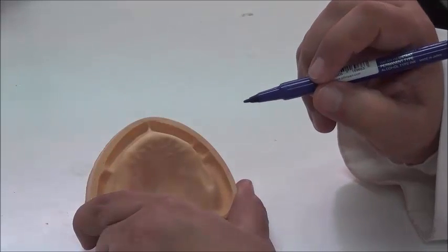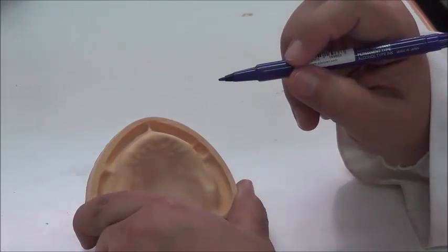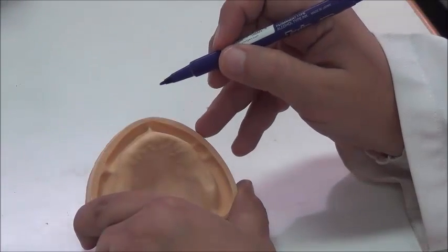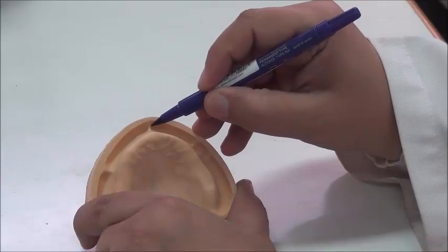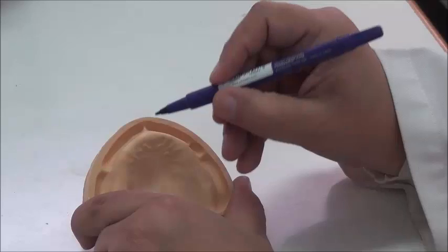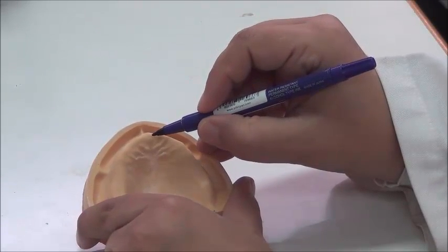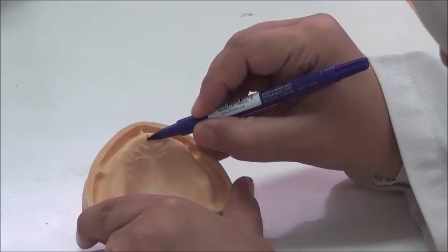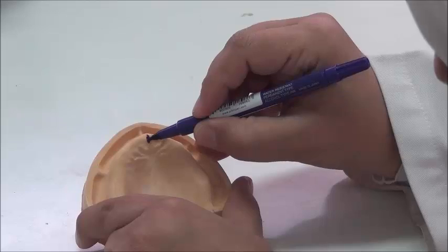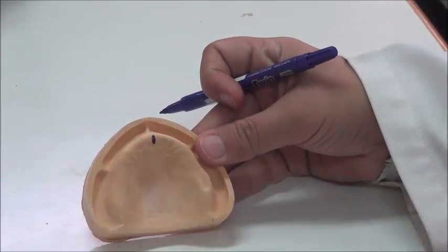But the labial frenum is a fibrous attachment, and many times in some patients they have had some trauma to it. Some patients, especially those in contact sports, if this is traumatized, it will no longer be in the midline. So we want something more accurate to be in the midline, as a reference point, and this is the incisive papilla. So you need to use a flowmaster and draw the incisive papilla in an elongated manner like this. Okay? So this is step 1.